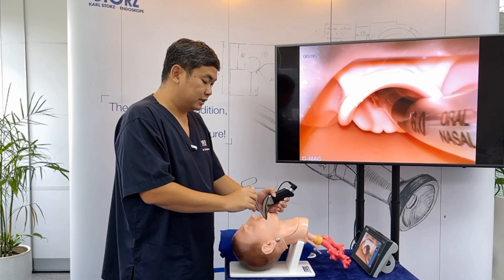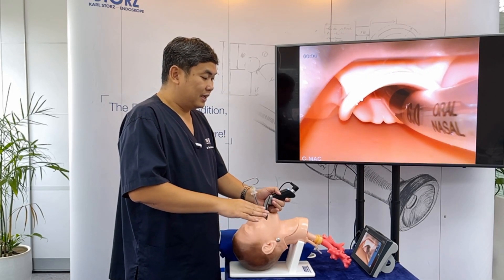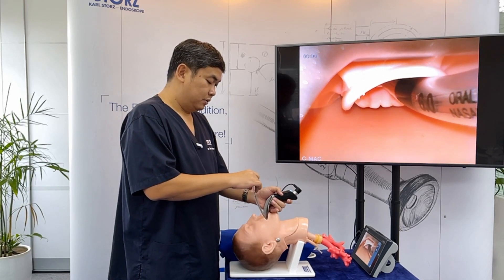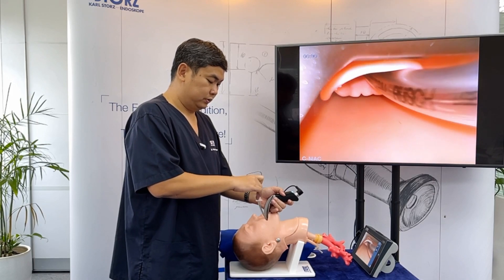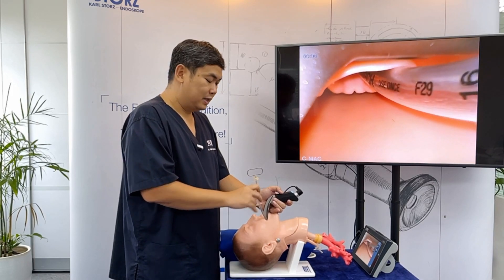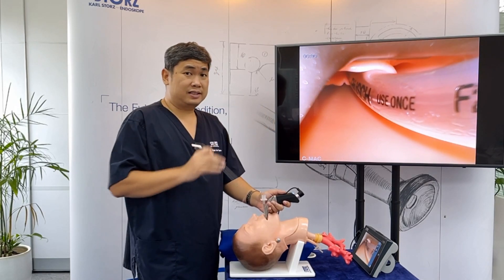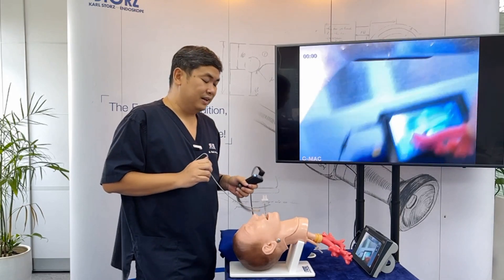If you encounter resistance and have tried the other maneuvers, relax your hand and proceed to intubation. If that's still not enough, you can flex the neck. Flexing the neck straightens the anatomy, making it easier to advance the ET tube.